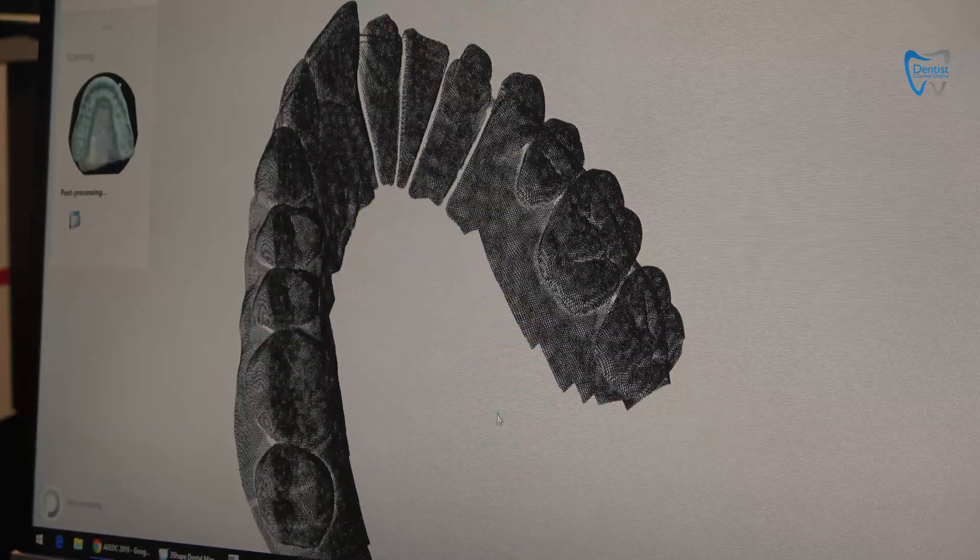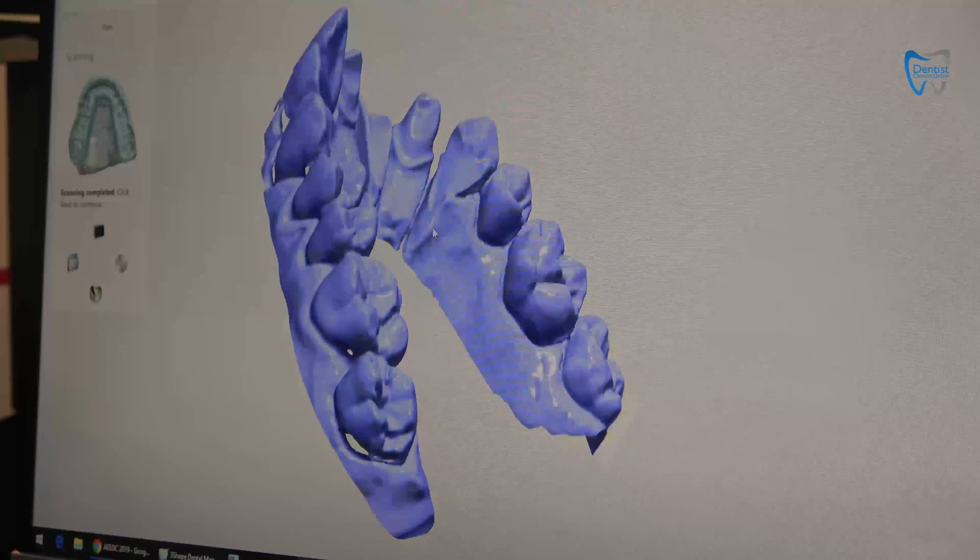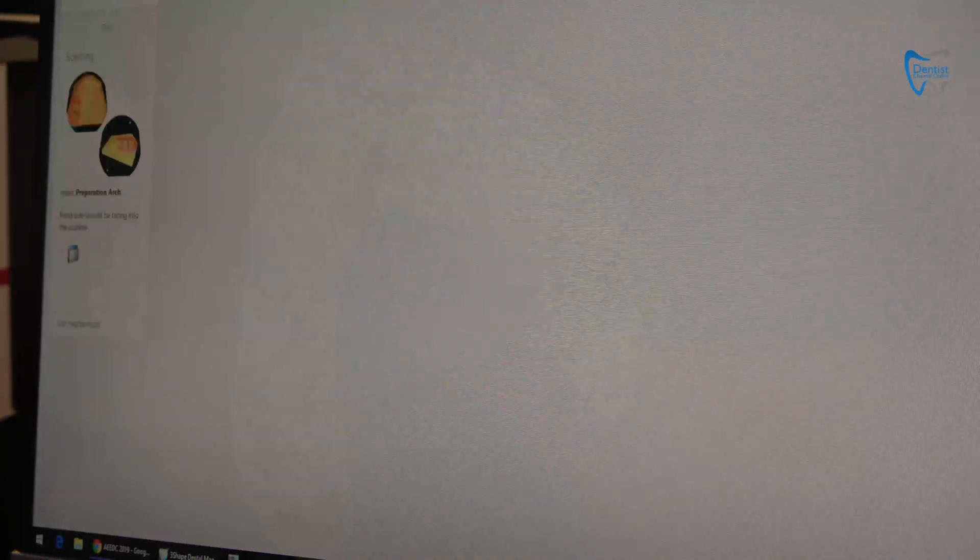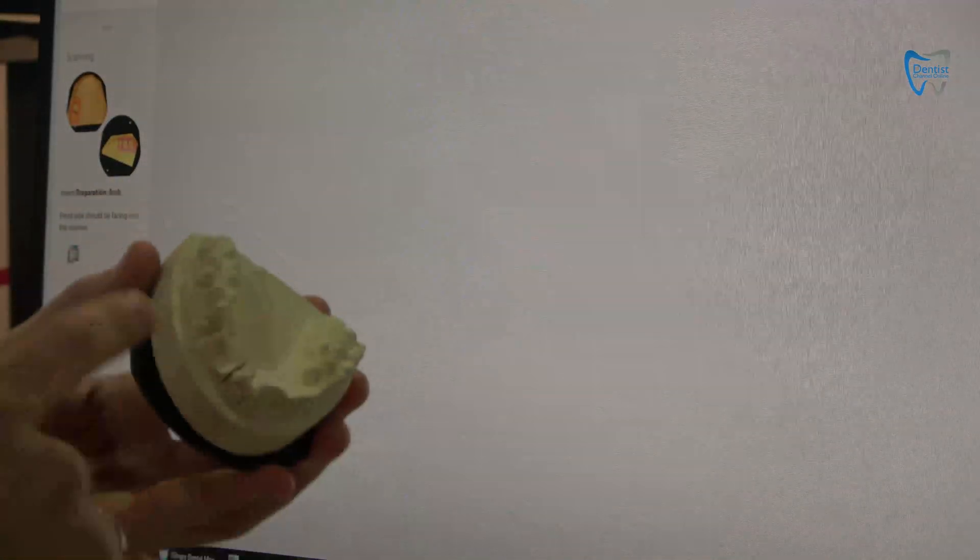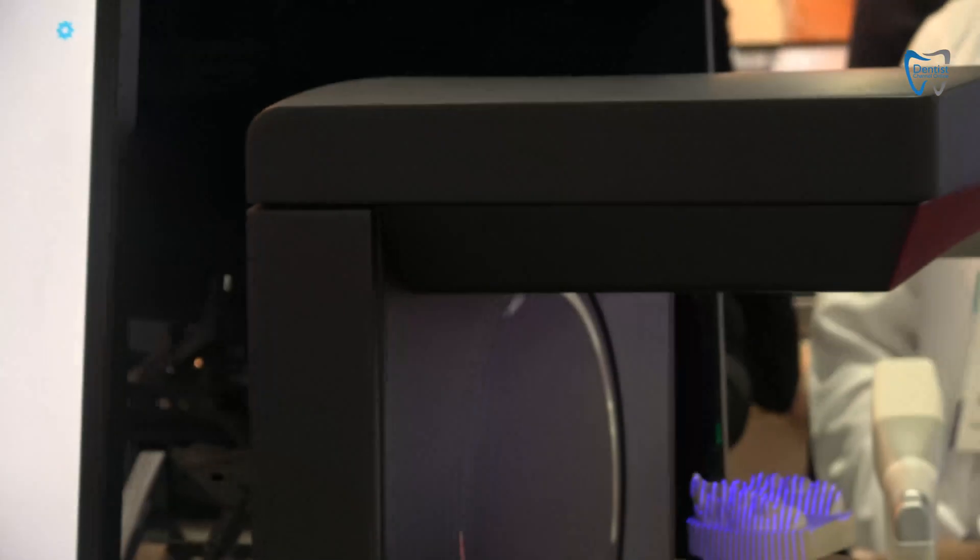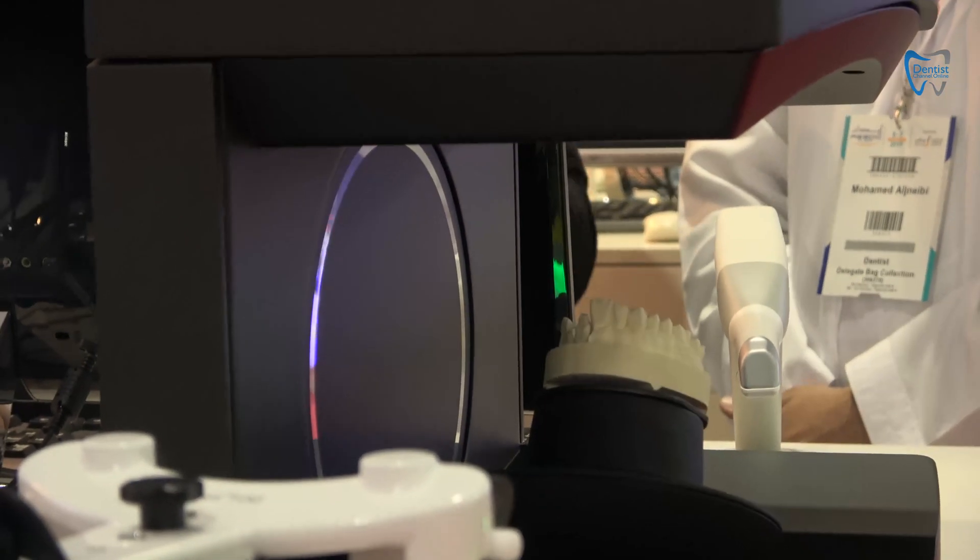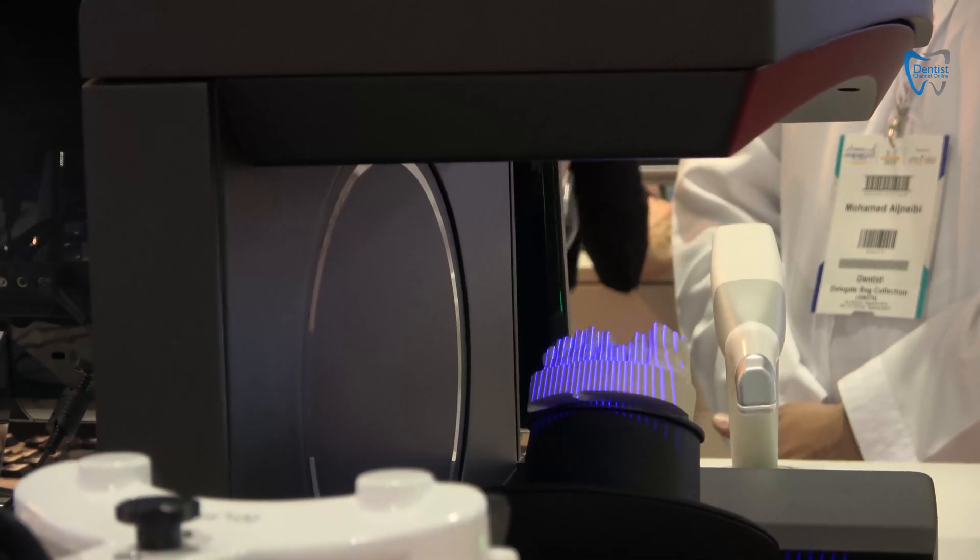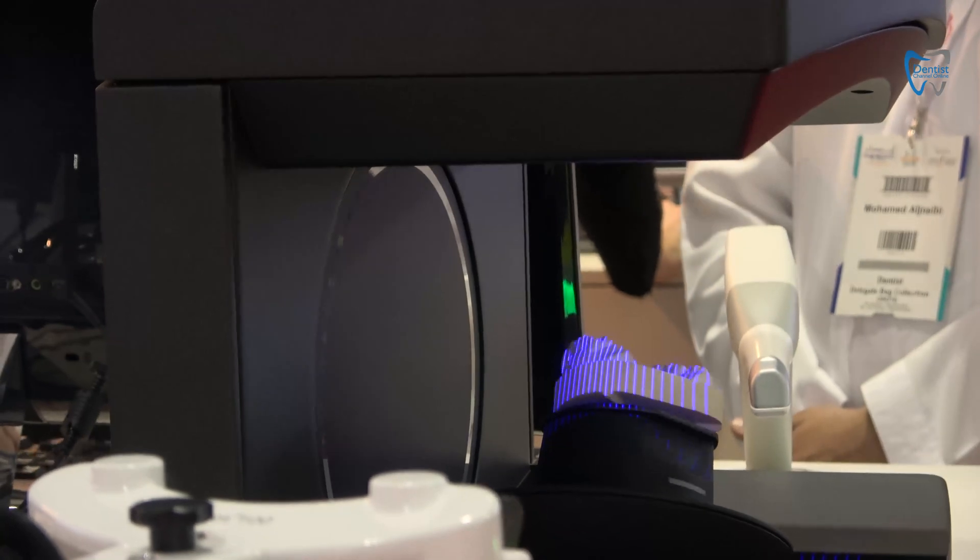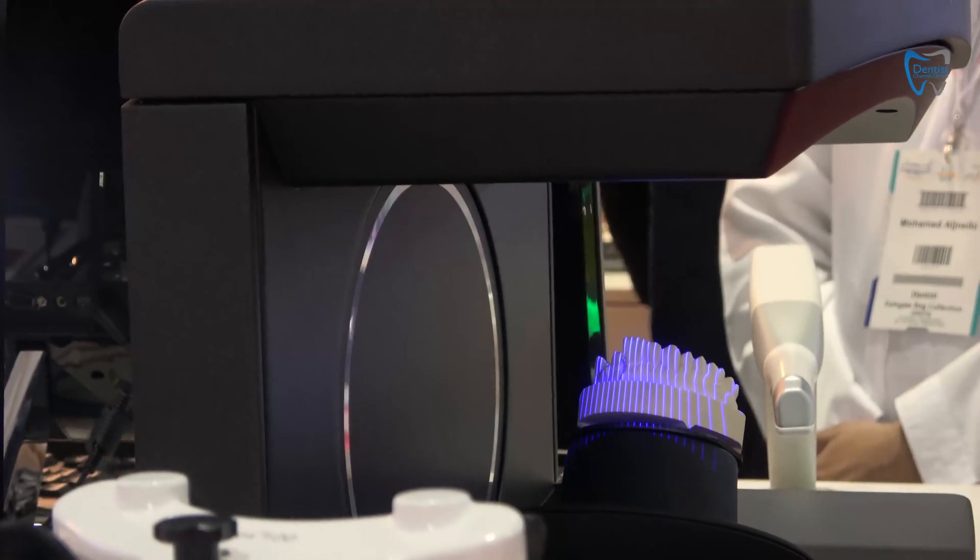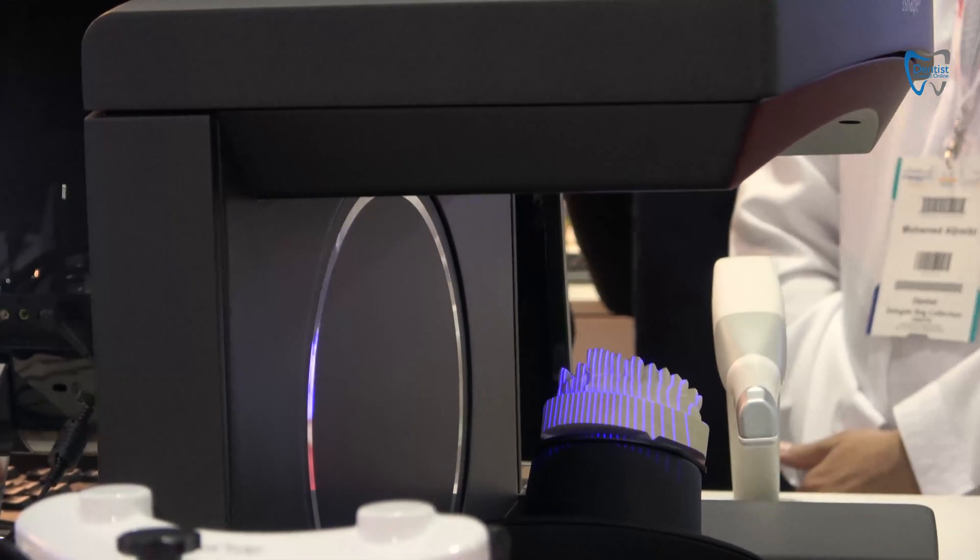So here we import what we like to have. There it is. And right now we are going to scan the same model, but for preparation, to create a crown. So if you have both teeth, you can use your own. While it's doing scanning, I can jump to any step, and just to save my time, I can do trimming.